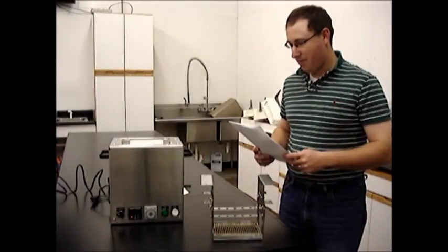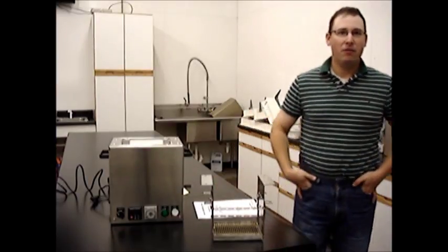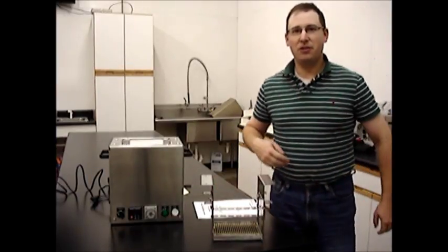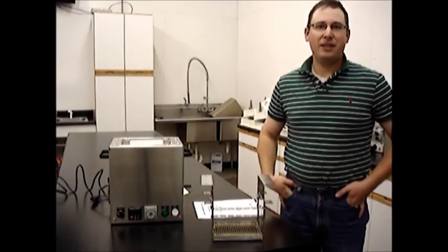Hello. Today we're going to talk about the Life Automation L1000 manual semen freezing machine that's available exclusively through AgTech Incorporated. Our website is agtechinc.com.